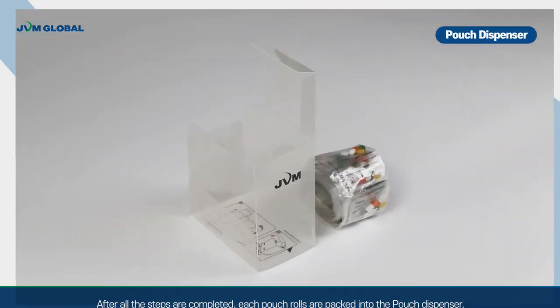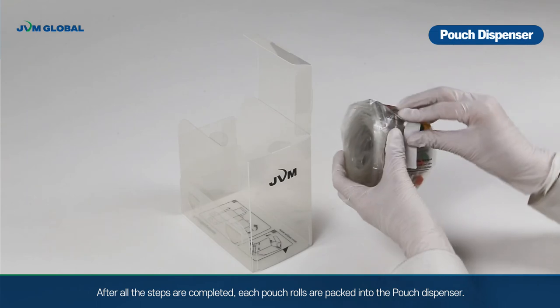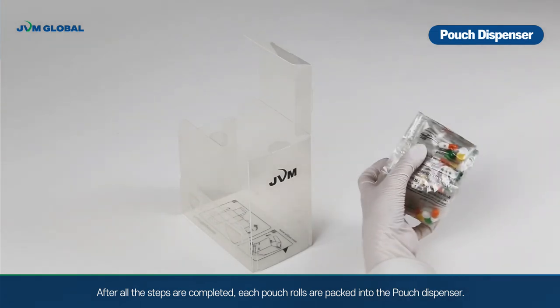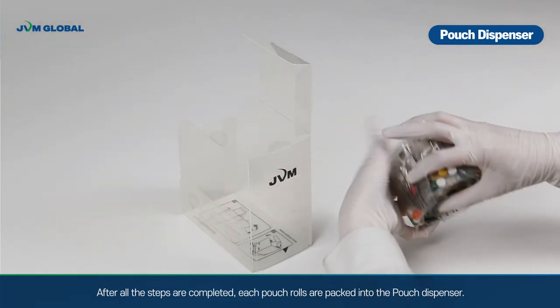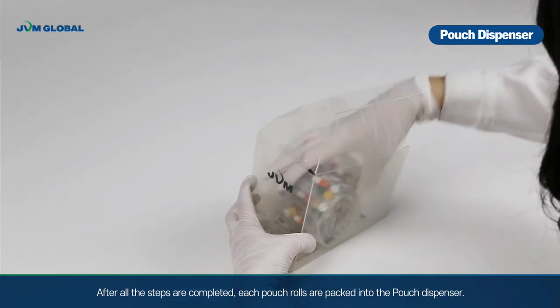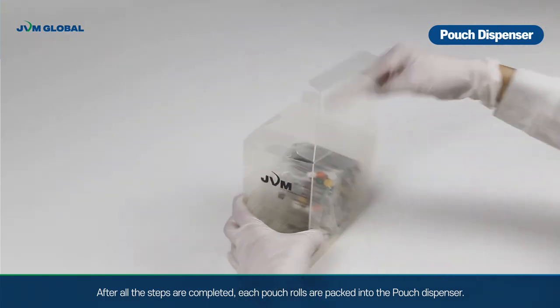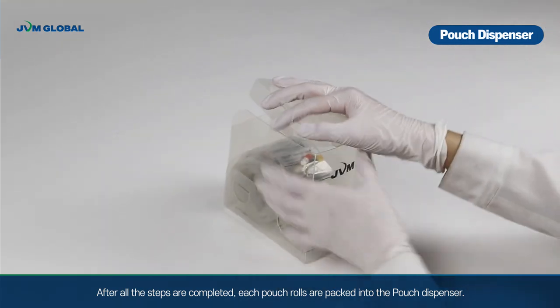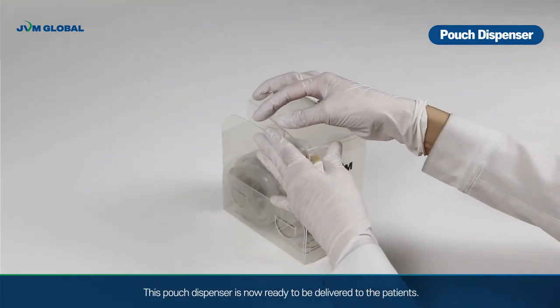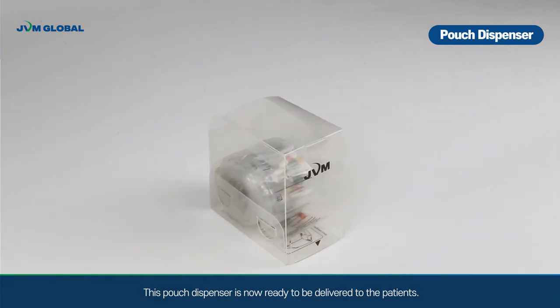After all the steps are completed, each pouch roll is packed into the pouch dispenser. This pouch dispenser is now ready to be delivered to the patients.